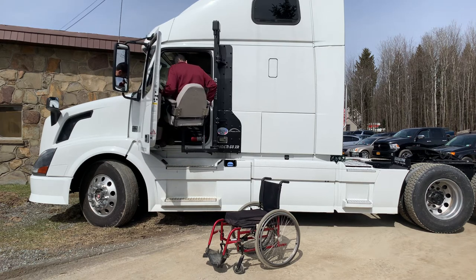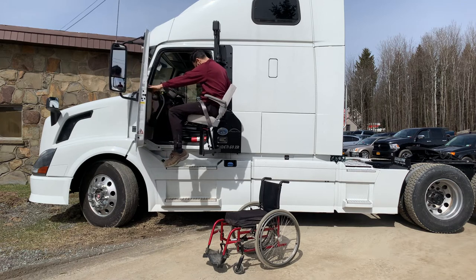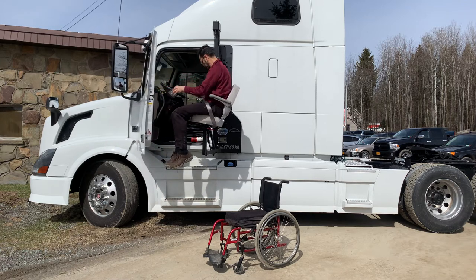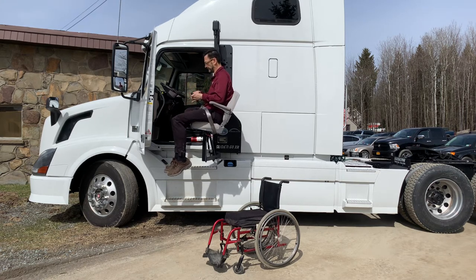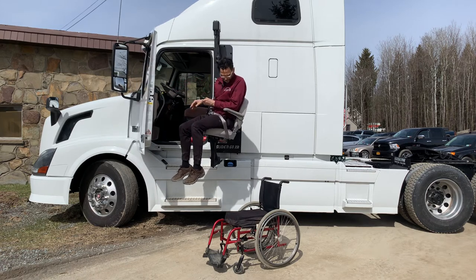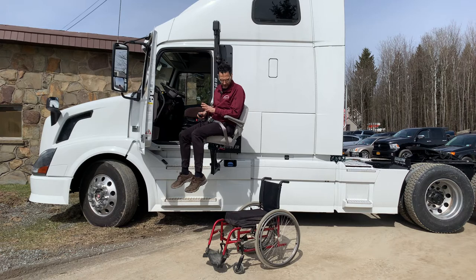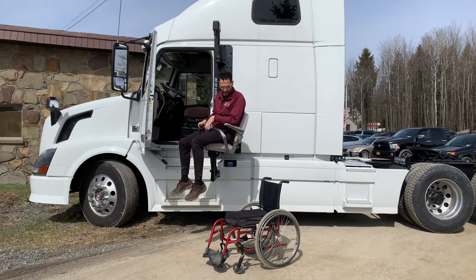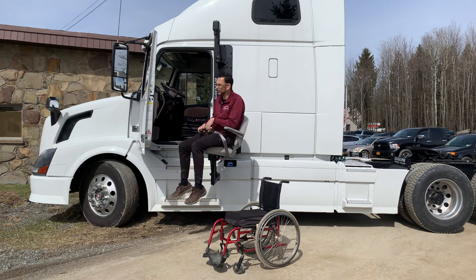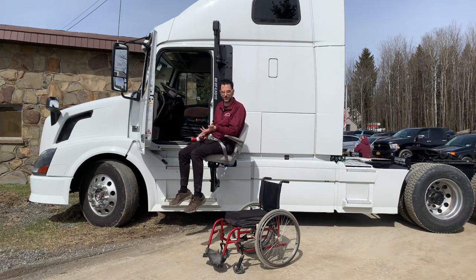We're going to push outward. Now this was set up so that we've got the wheelchair down below. There is another video you'll see in the notes field down below about how to transfer when you have your wheelchair — when you're bringing your wheelchair up and back.